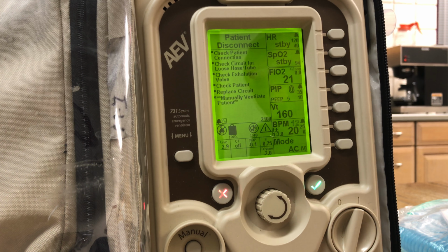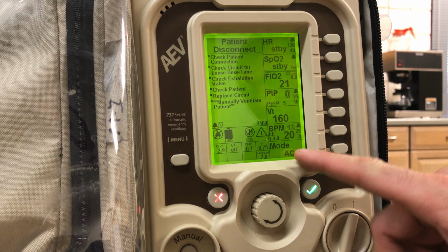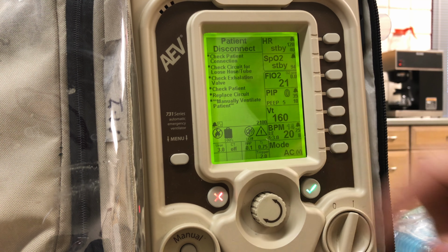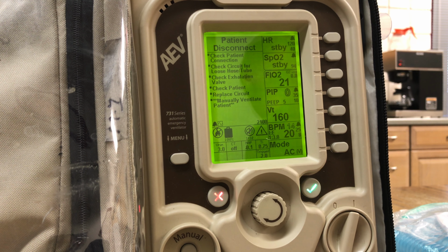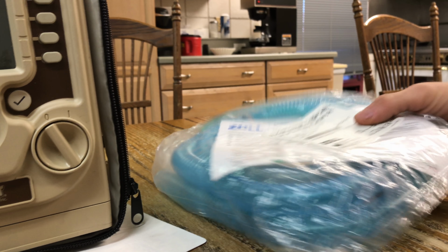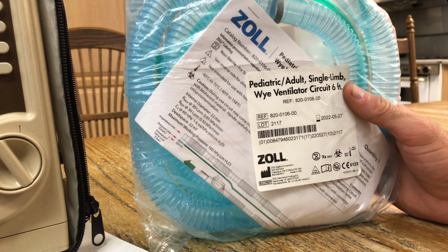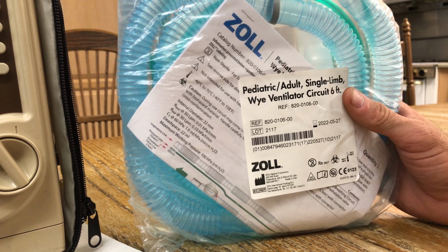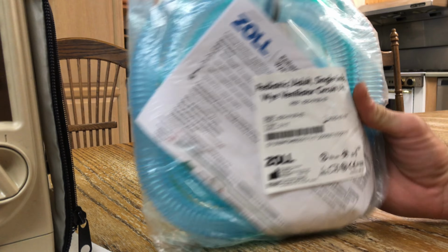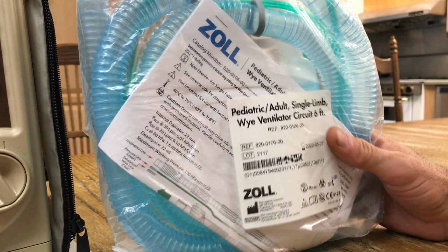Okay, so one more point, that's two ways to fix it. One way is to do pediatric, and you have to switch the mode, or just leave it in adult is the second way. And you can just adjust your tidal volume and your breaths per minute. The other thing that's good to know with this is a pediatric and adult circuit. This circuit is used in pressure mode. It needs this circuit in there so it can calculate the dead space of this tubing for that pressure mode.